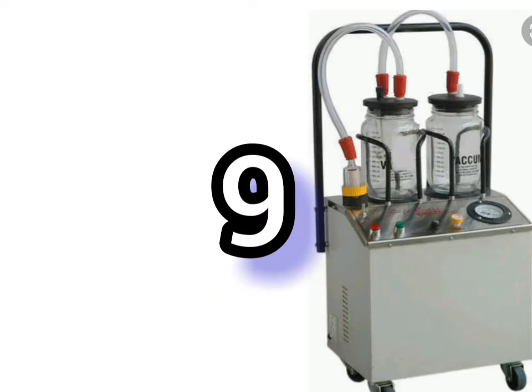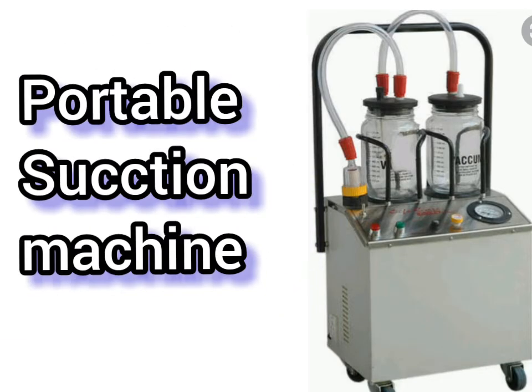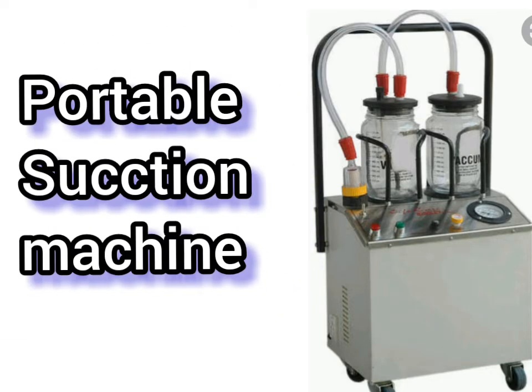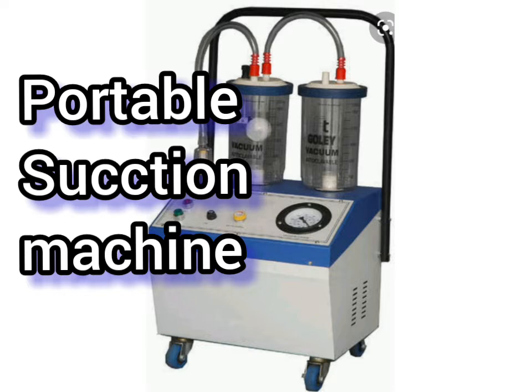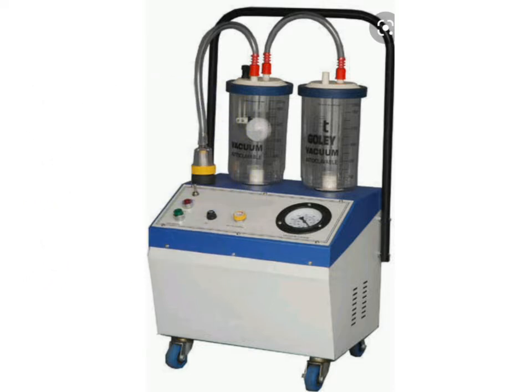Another most important equipment in the ICU is the portable suction machine. Using the suction machine, if a patient has any secretions in the mouth or airway, we can easily apply pressure and clear them out.